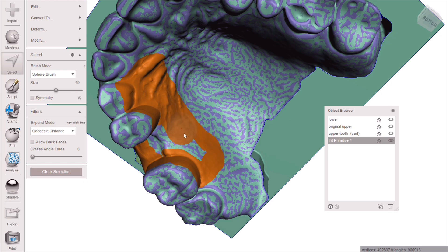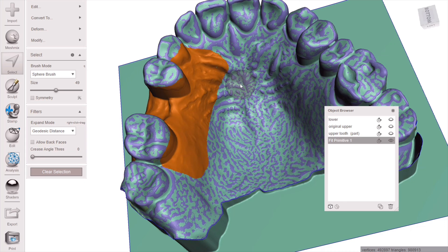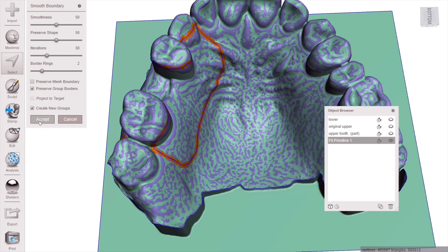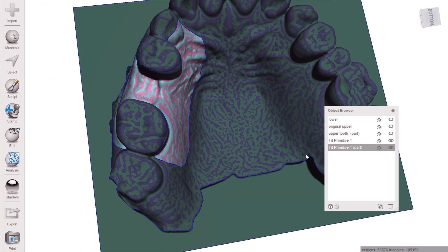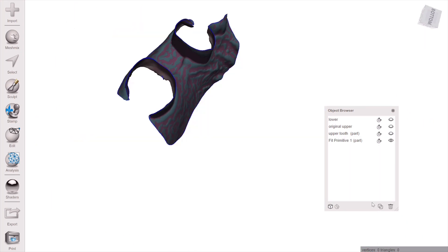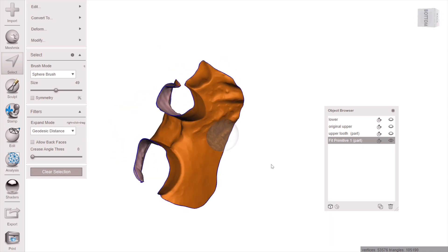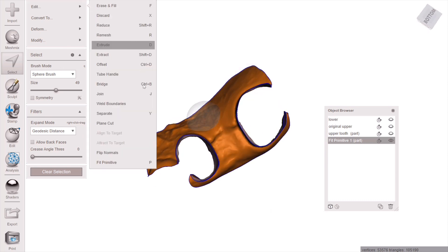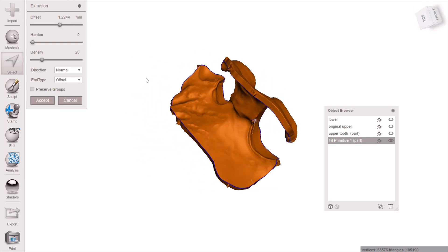You need to fill in every little speck — you can't have any holes here, so take your time and fill in without even the tiniest hole. Then hit B as in 'boy' on your keyboard to smooth that border once you have it the shape you want. If you get an error where you don't see your smooth border, it means you've got holes somewhere. Once you have a beautiful smooth border, hit Y on your keyboard to separate that as its own mesh.